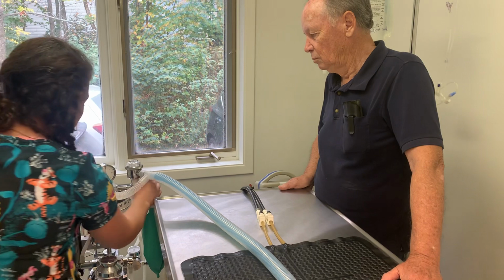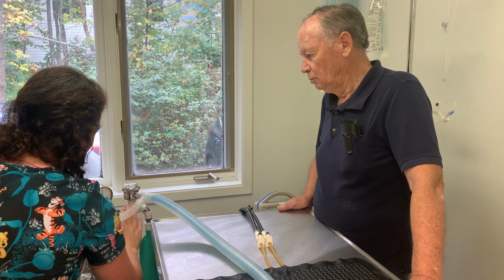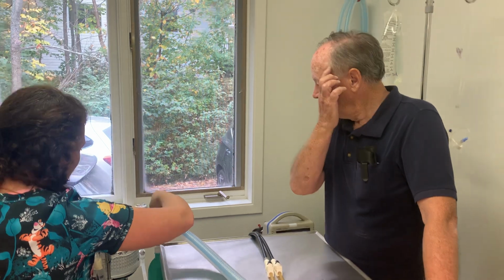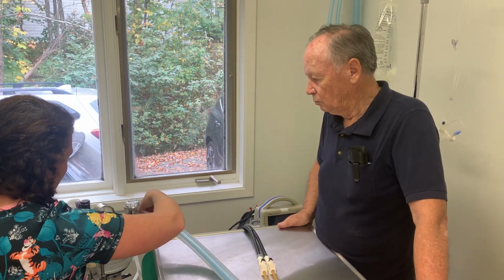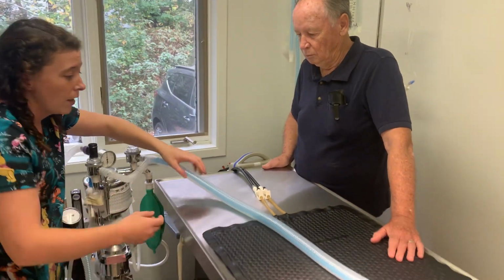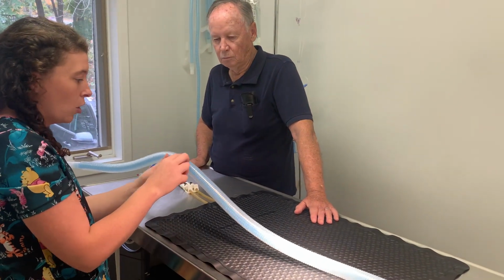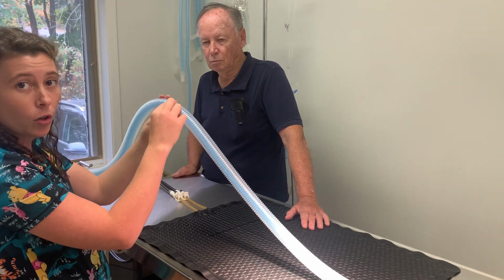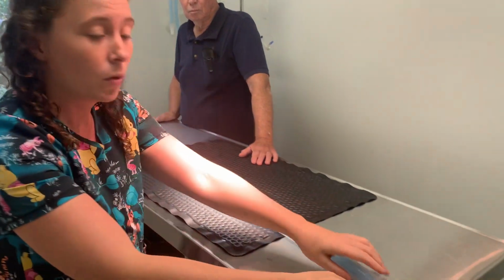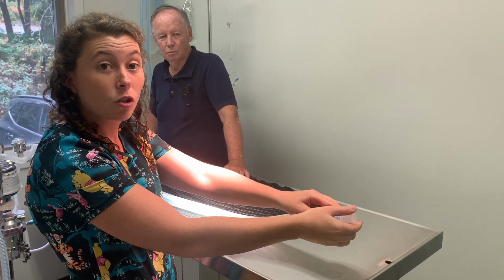This is the inspiratory flutter valve and the inspiratory chamber here, and it's going to go in from the inspiratory valve and out the inspiratory outlet here. And it's going to go down the inspiratory limb, which is right here. Now, the inspiratory oxygen and ISO is going to be received through, you can see right in the middle here, there's a small tube that's going to be taking the oxygen and the ISO to our patient. So it follows all the way down the inspiratory limb to the end here where it's going to be connected to the ET tube for the patient.